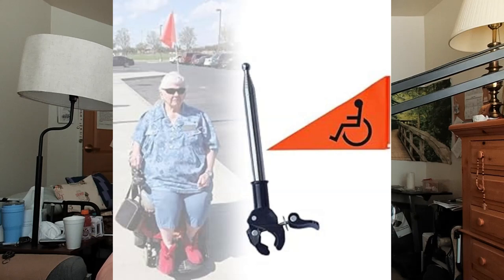It does not come with a flag, but you can request a flag for your power wheelchair. That's a recommendation - even if it's just across a parking lot or down a sidewalk, it's prudent to have a flag. If you're looking into getting any kind of power wheelchair, request a flag - it saves you the hassle of getting one. What I did was I got a telescope-type rod and tightened it to the back. It has a little hitch in the back of the power wheelchair, so I tightened it to that. When I go out, I raise the telescope-type bar and tie the flag to it, and then I'm ready to go.